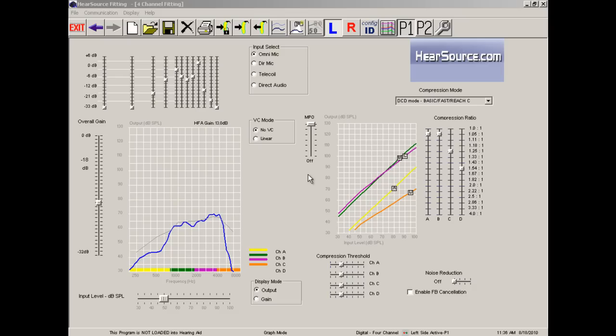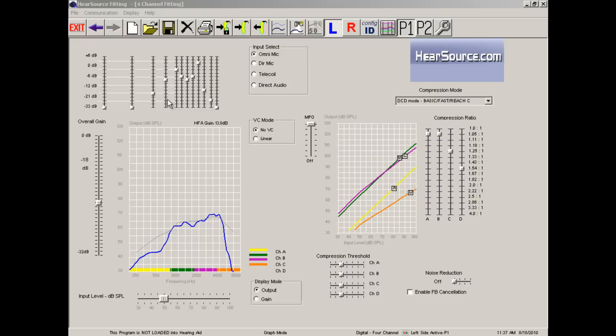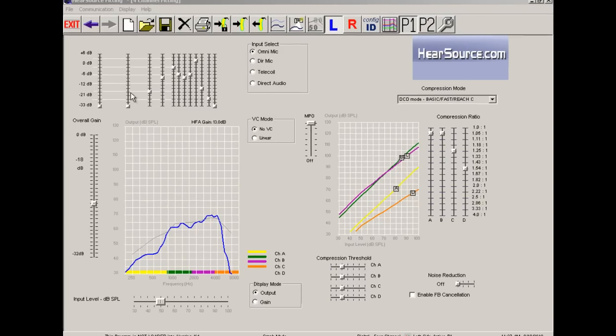This is the software that we use to program our hearing aids. In this tutorial we're going to focus on the 12 band equalizer. This is the part of the software where we're able to go in and fine tune the hearing aids on a per frequency basis. So follow my cursor here, we're going to go up into the top left corner here, and this is our 12 band equalizer.